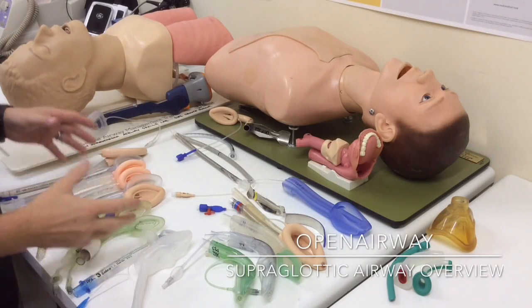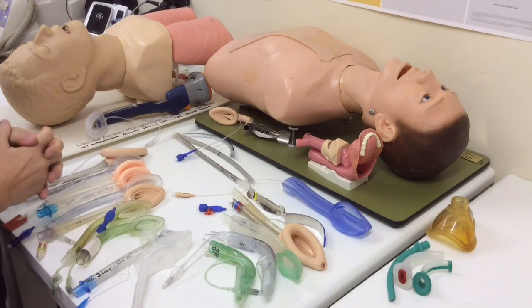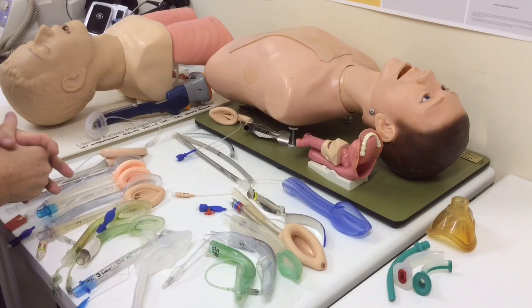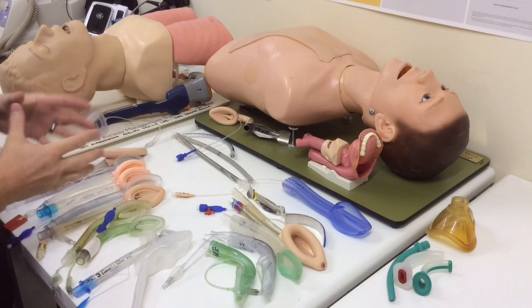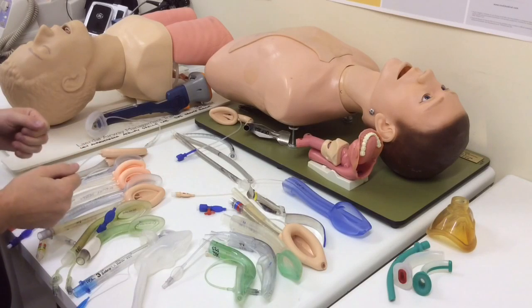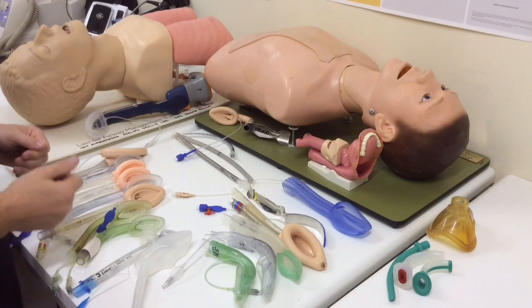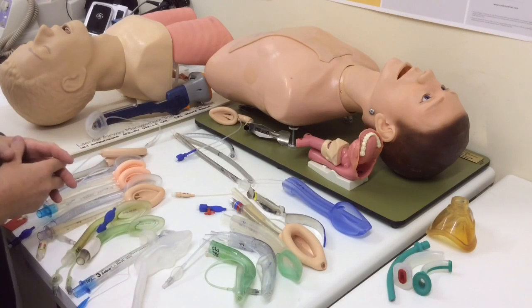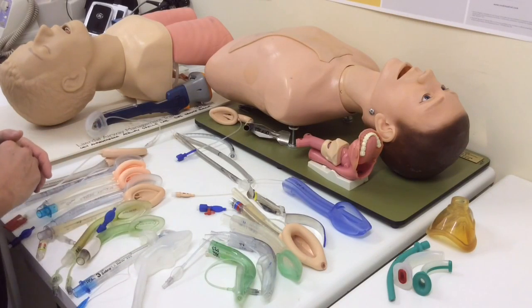I'm currently in the UCT Anesthesia Airway Skills Lab, and in this short series of videos we're going to be talking about supraglottic airways. Now these videos are definitely going to be brief and they're likely to be far from perfect, so if there's anything you disagree with or there's stuff that you'd like to see or there's important stuff you think I've left out, please put in the comments and we'll evolve them over time. I'm aiming to keep them short and sharp and to the point.